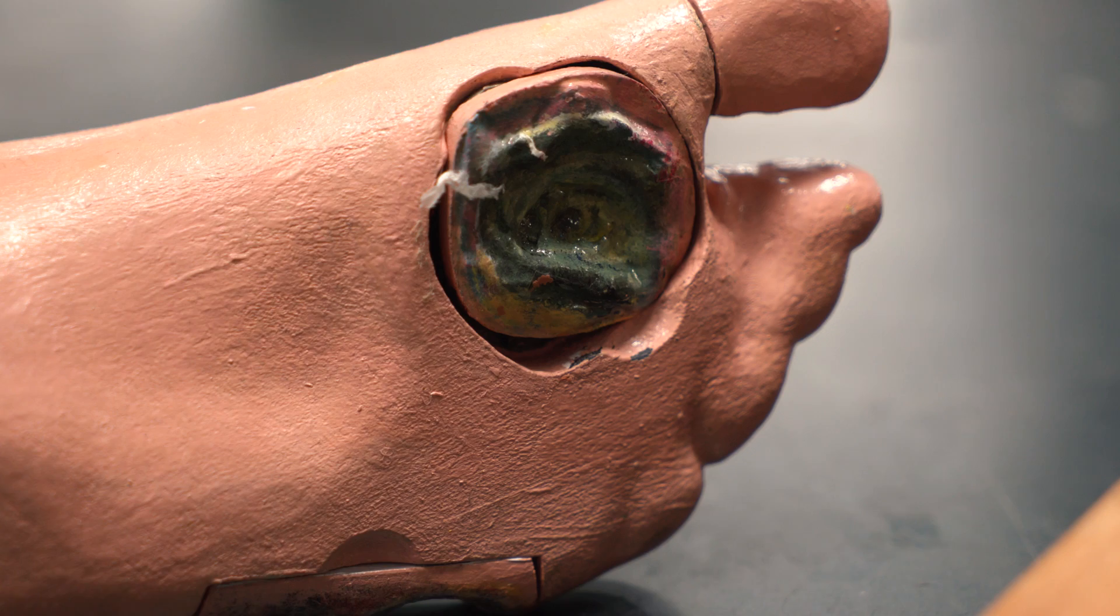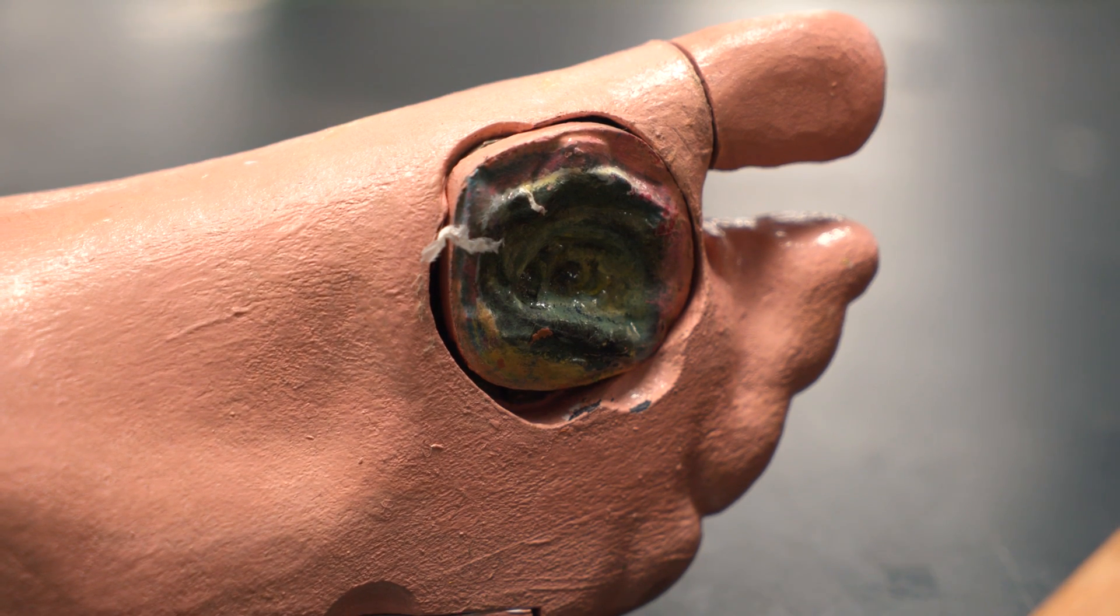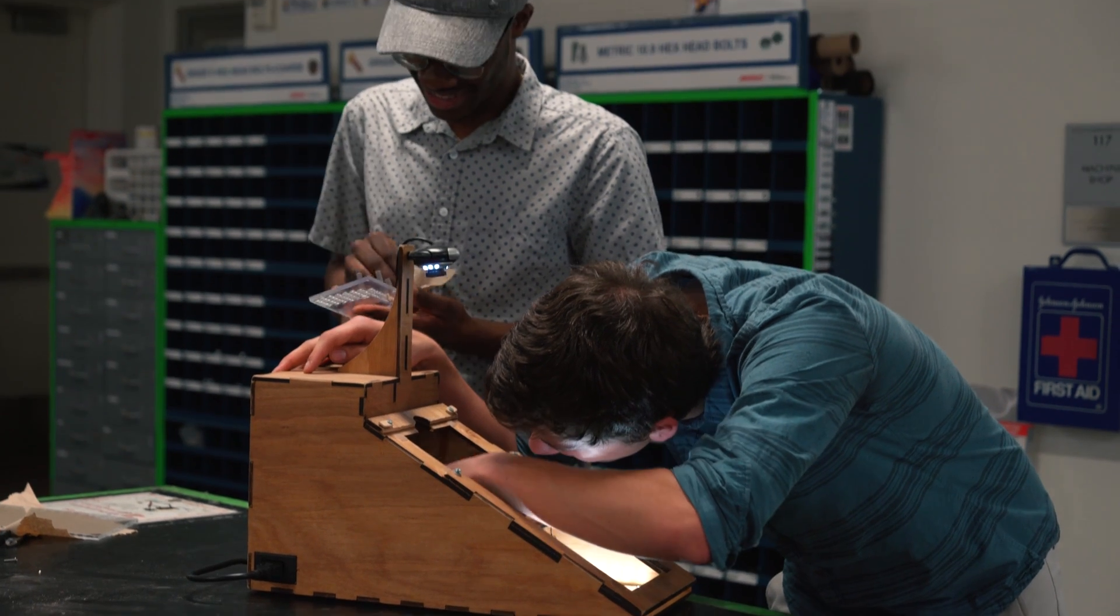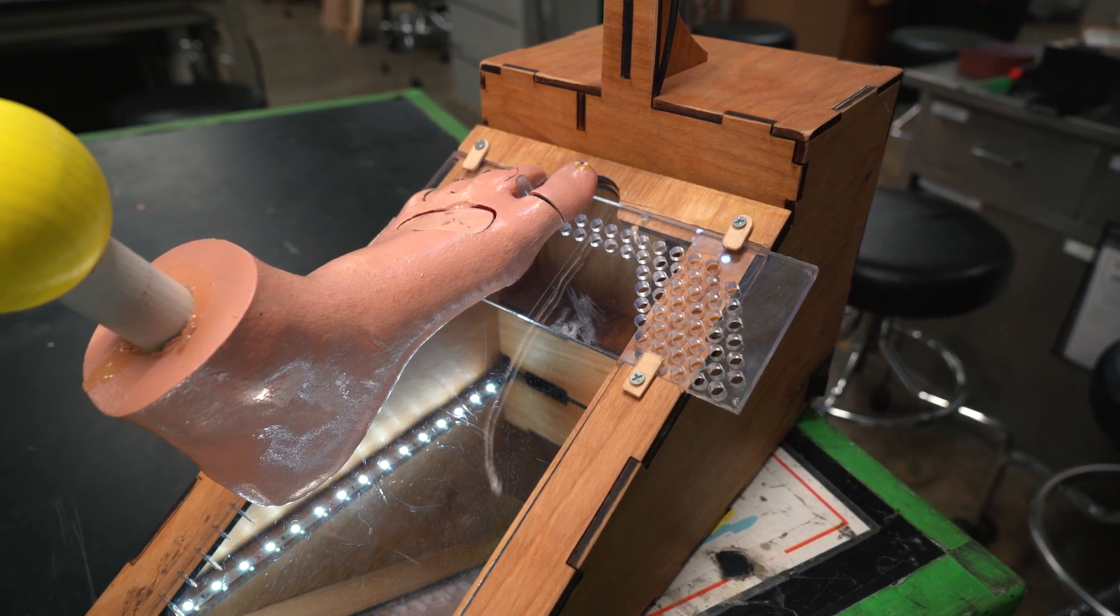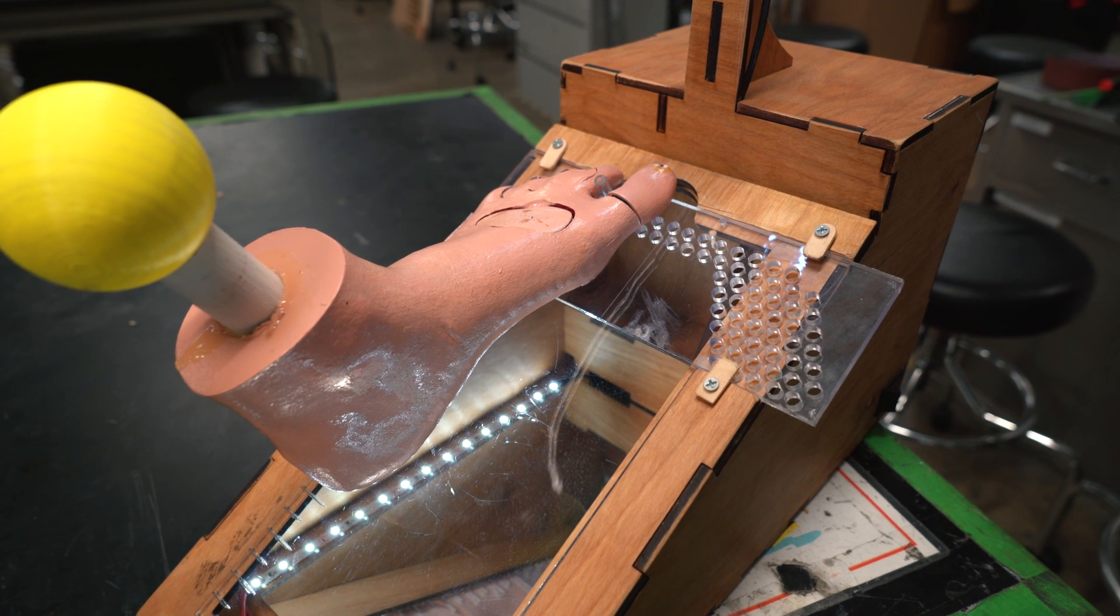When you can't feel these, small cuts can develop into much worse things. This device is designed to help people inspect their feet when they don't have the feeling or the mobility to actually check the bottom of their feet themselves.